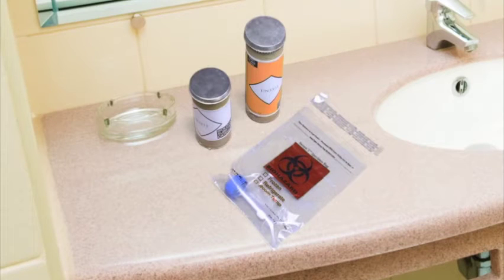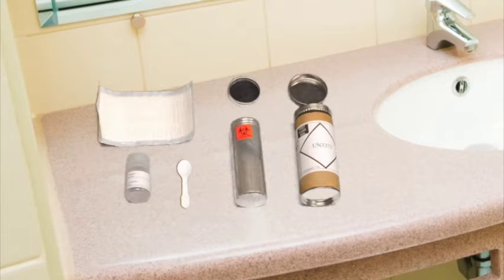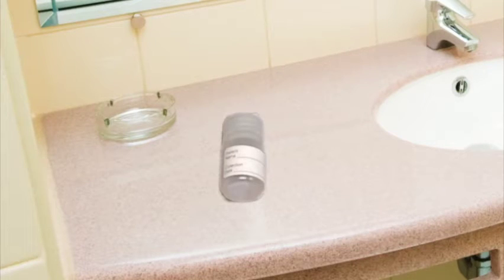You should have also been provided with a stool sample collection container that may look like one of these. The collection container should include an outer cardboard tube, an inner metal container, and a small spoon with at least one plastic container holding a liquid or gel to preserve the sample. The plastic container should be wrapped in an absorbent material.